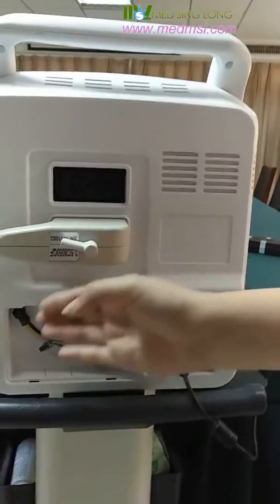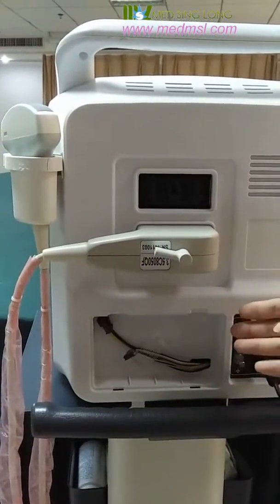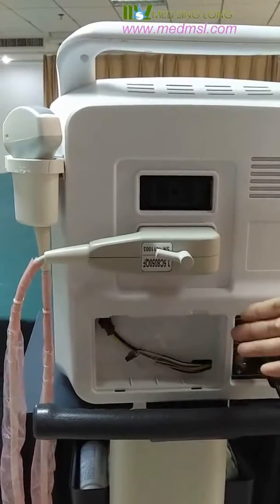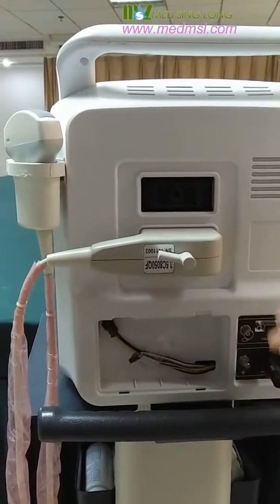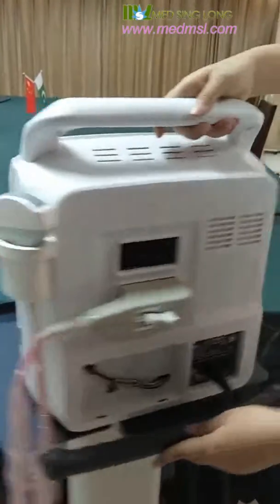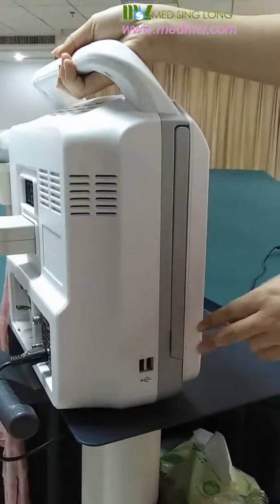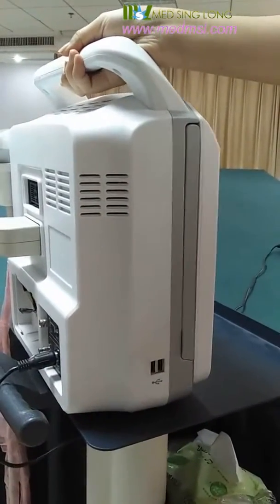This area is about the battery. You can see it has a built-in rechargeable battery — it is optional, so it is not installed here. And these are the two high-speed USB ports.